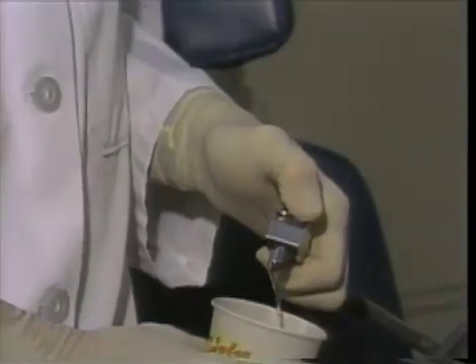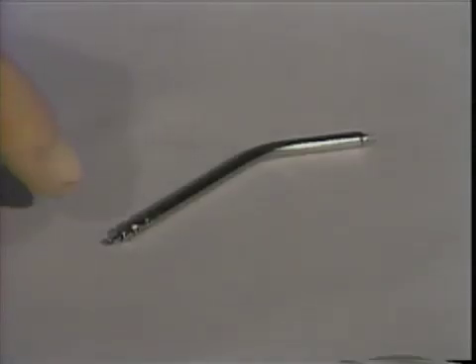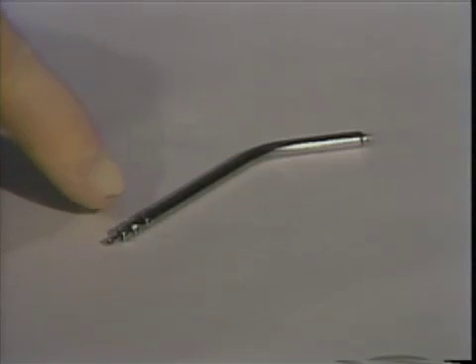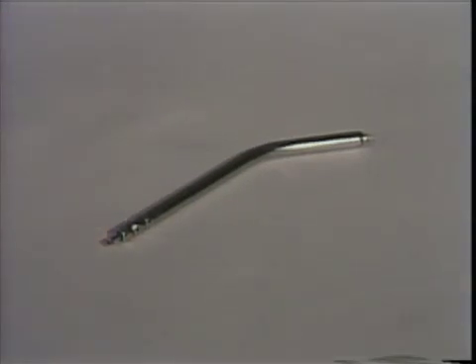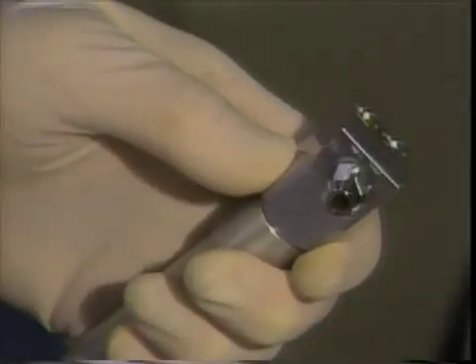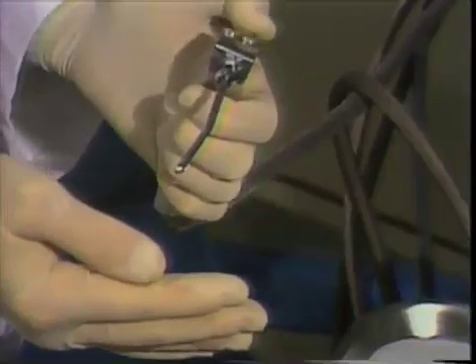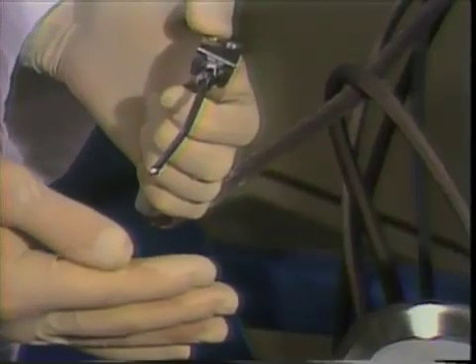Flush the water line for one minute into a sink or into a paper cup before attaching the tip. Notice the two different ends of the triplex or tri-syringe tip. Then finger loosen the collar. Insert the notched end of the tip until you hear two distinct clicks, then finger tighten the collar. Test the water, air-water combination, and air on your hand before using on a patient.